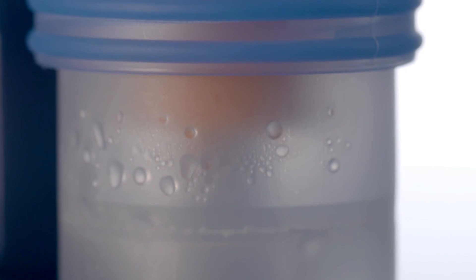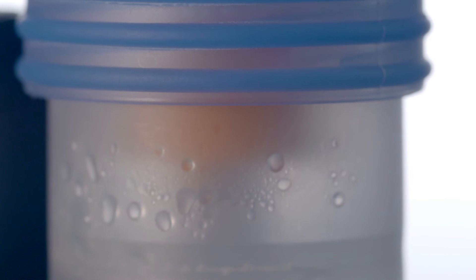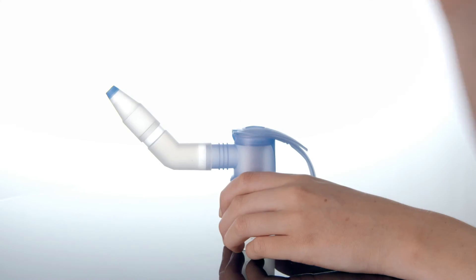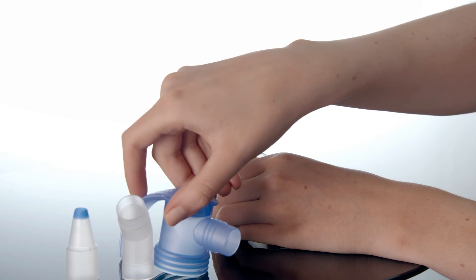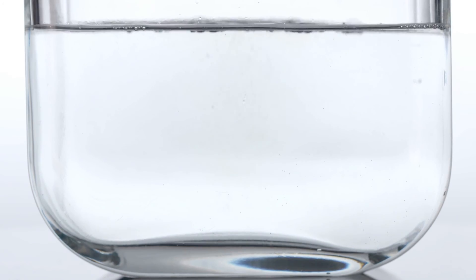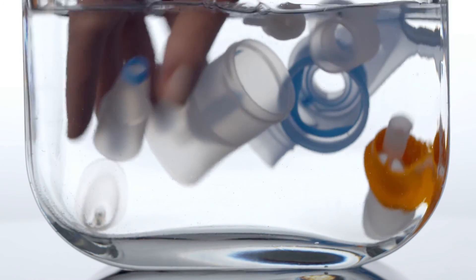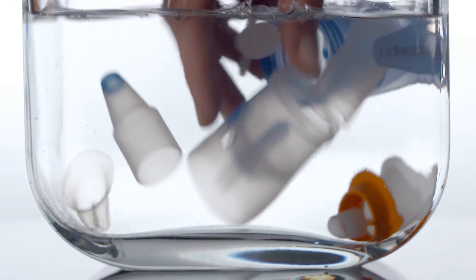It is normal that a small amount of the solution remains in the nebulizer even after you have finished. Dismantle the nebulizer after every session and wash the components in water with a little dishwashing liquid. The tubes should not be washed or disinfected.